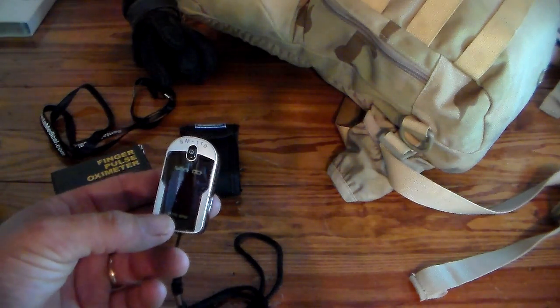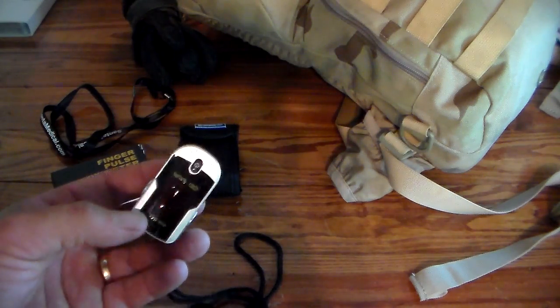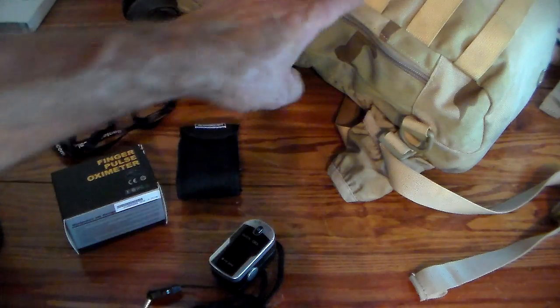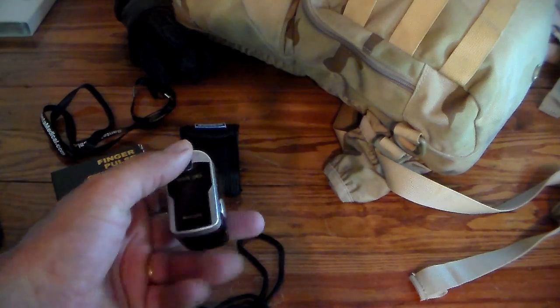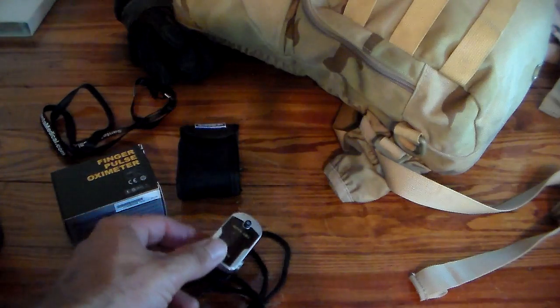My wife has to have her own for her medical bag because she likes to have it set up just the way she likes it so she can find things quickly. I also put one in my search and rescue bag if I go up on the mountain. This is a very non-intrusive device — basically you're just going to put someone's finger in it and take a reading.